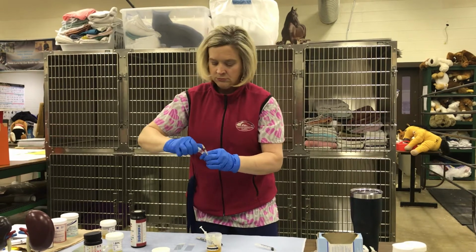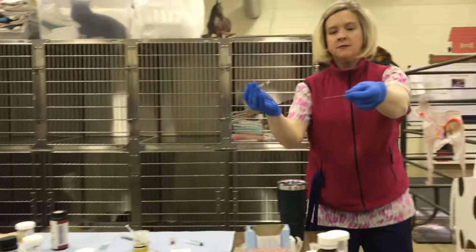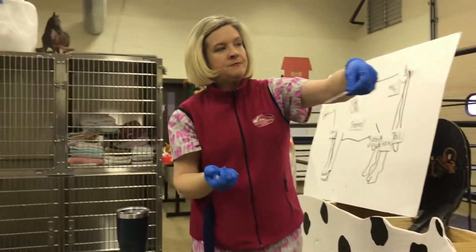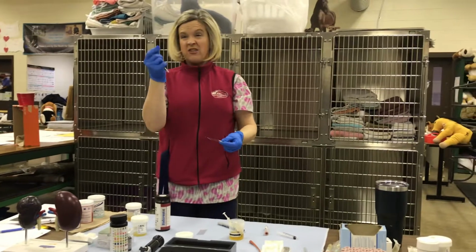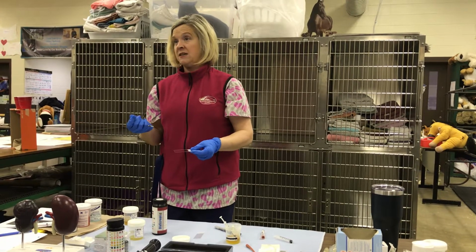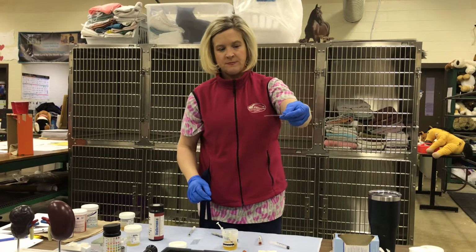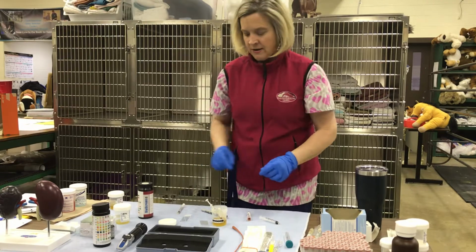Then I put a little bit on the microscope slide. I put a drop and let it run down the slide. If we have a plug that's really thick and looks real cloudy, that may mean we've got a lot of cells in it. That's when I like to do a urine cytology, because I can see a lot of cellular matter that I will not see on my urine sediment. We place this here to allow it to dry.